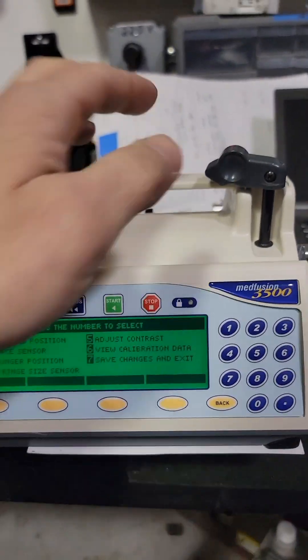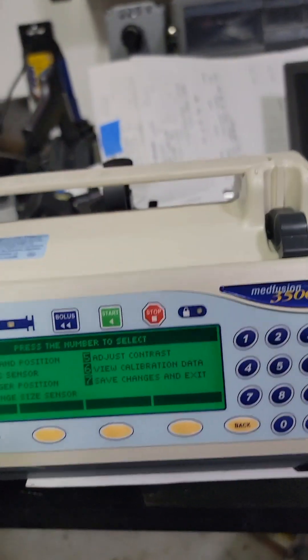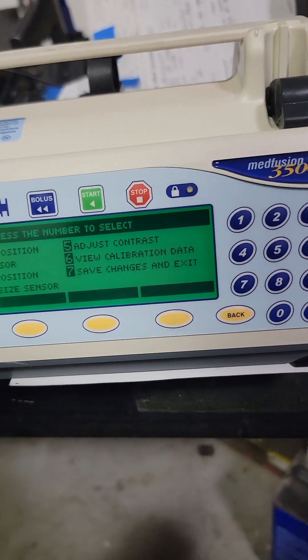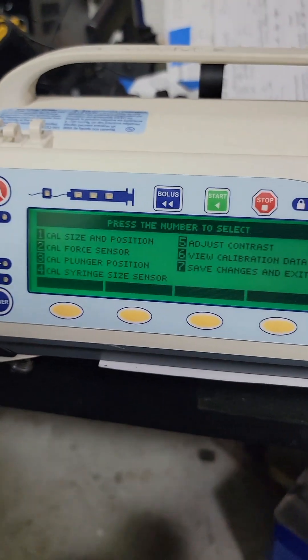Other than that, basic PM tests — load your syringe in, use the 60 milliliters, set it for 240 milliliters an hour — that's what I do — and it should run for 15 minutes. Set your timer and have your graduated cylinders so you can verify that you get 60 milliliters out.